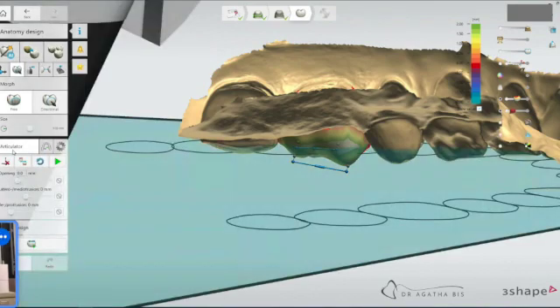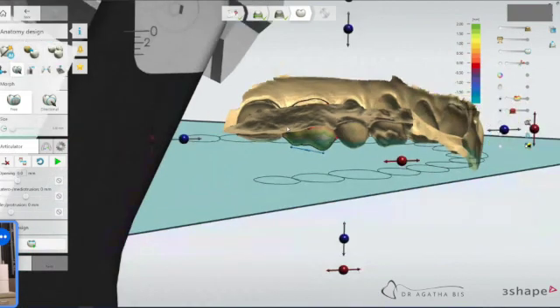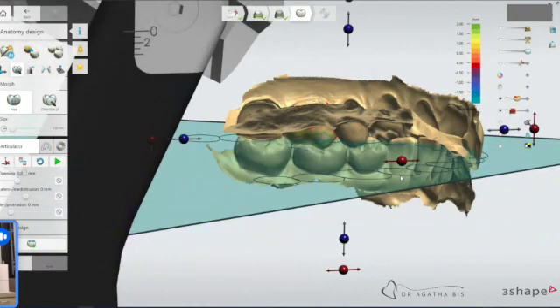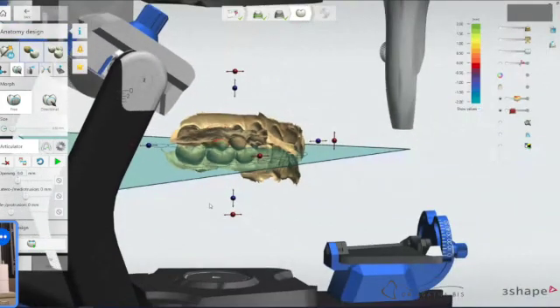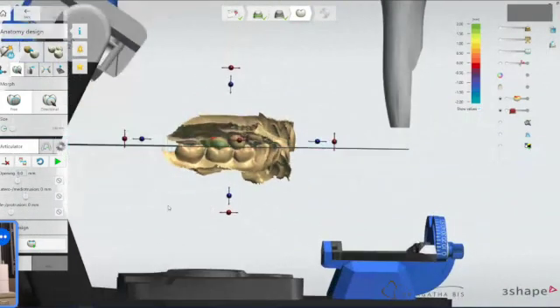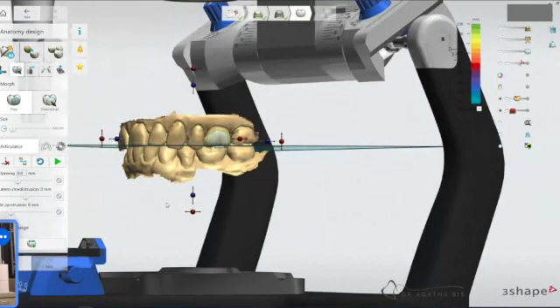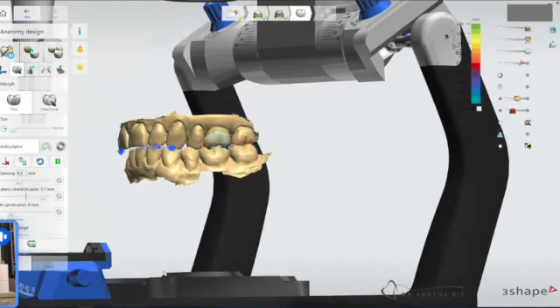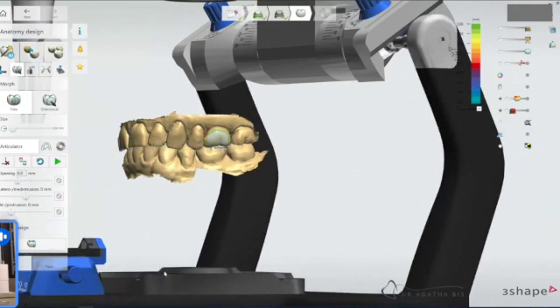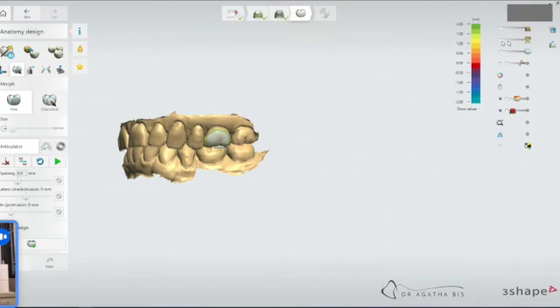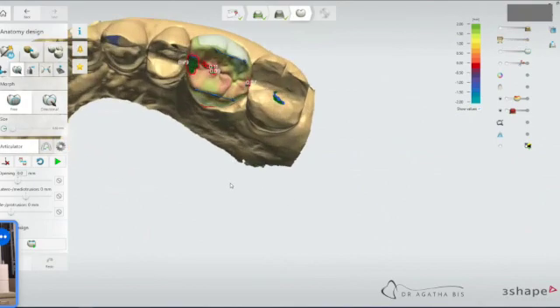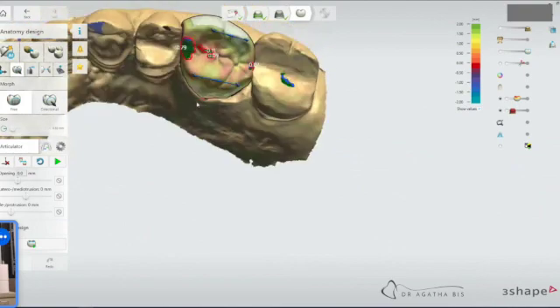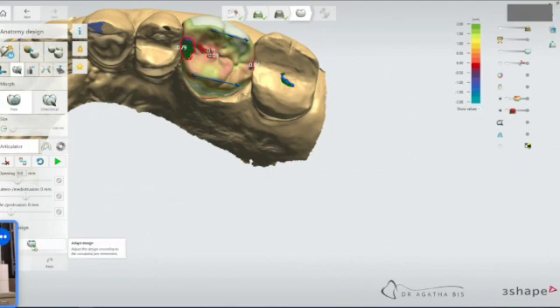So with the articulator function, I'll just zoom out. What you've got is if you use both teeth, you can actually see how she plays and then you can see how this functions. What I'll often do is I'll click the articulator off so I can flip the model around and then I'll remove the opposing so I can see what's happening. We've got some non-working interferences right here and you can either delete those yourself or you can let the system do it.